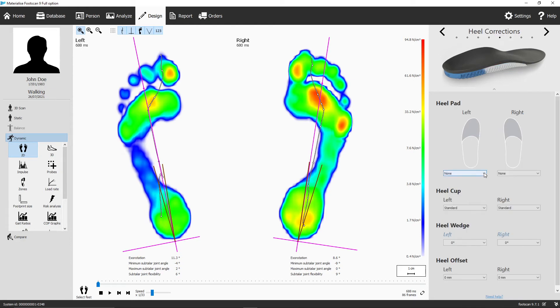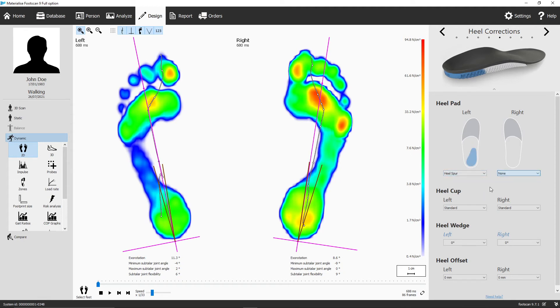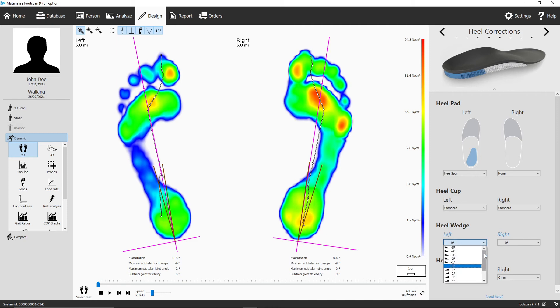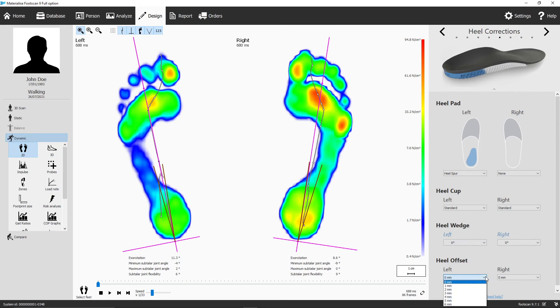The heel corrections screen has an option to add local cushioning in the heel area, in case of fat pad, heel spur, or plantar fasciitis issues. Note that this is a top cover solution and is only available for insoles with an EVA top coat. Other heel corrections are the standard or low heel cup. The heel wedge is calculated based on the loading on the medial and the lateral side of the heel zone, and the heel offset, which allows you to add a heel raise in case of a leg length discrepancy.